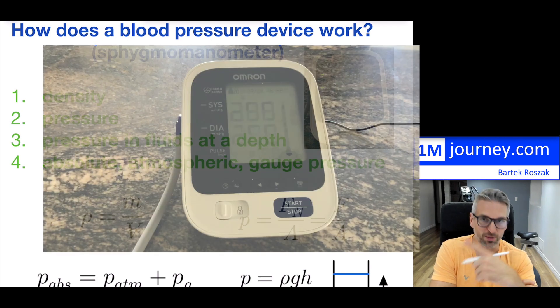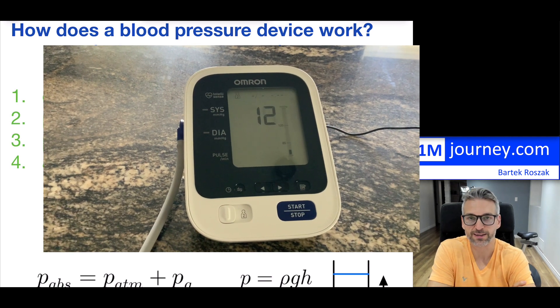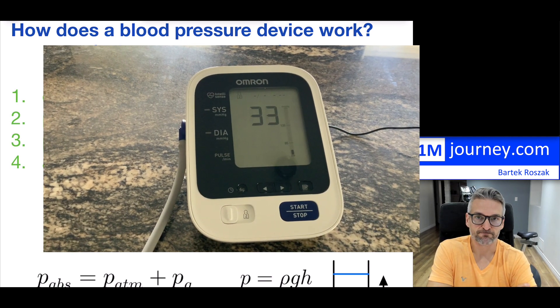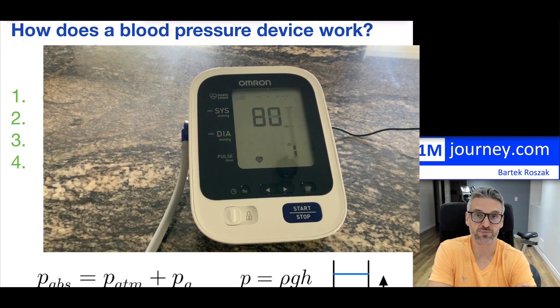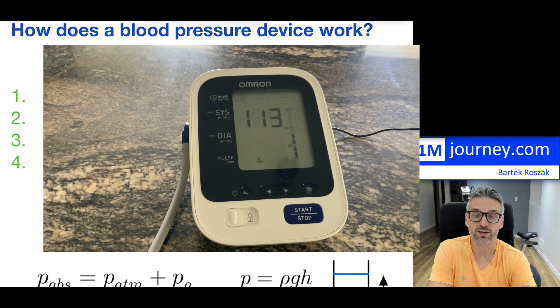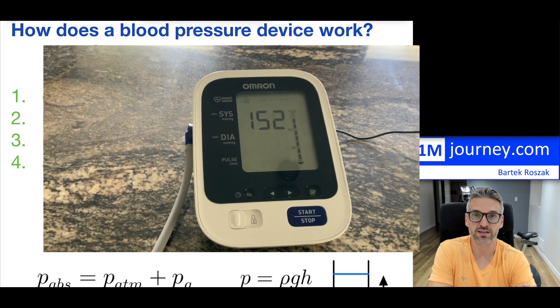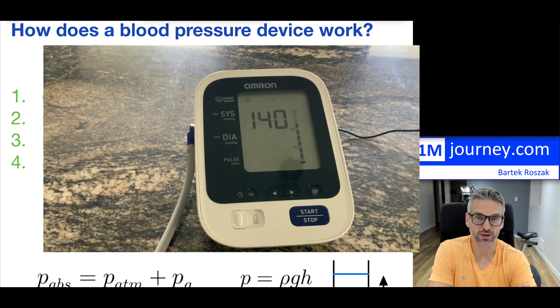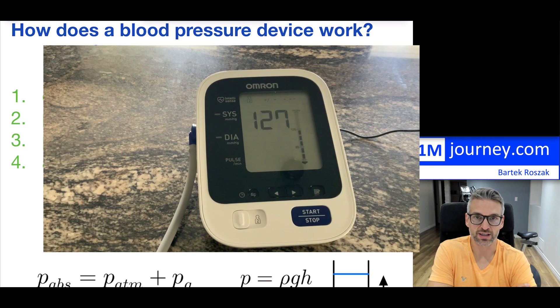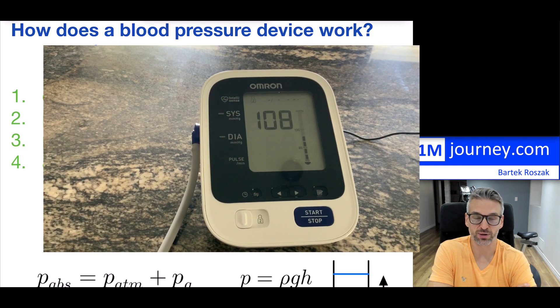As you can see on the screen, I'm taking blood pressure — and that blood pressure is actually my blood pressure. So it's going to be the reading which gives us the blood pressure. There are two types of blood pressure that we typically measure: systolic blood pressure and diastolic blood pressure.